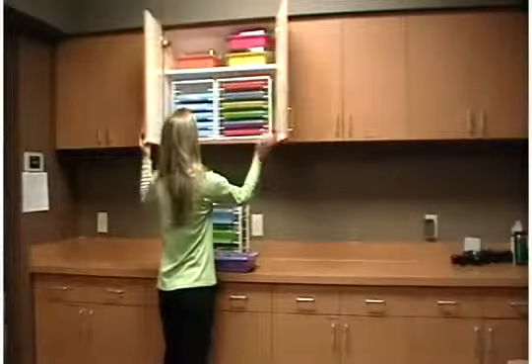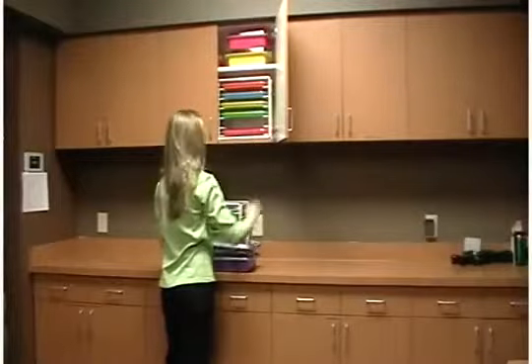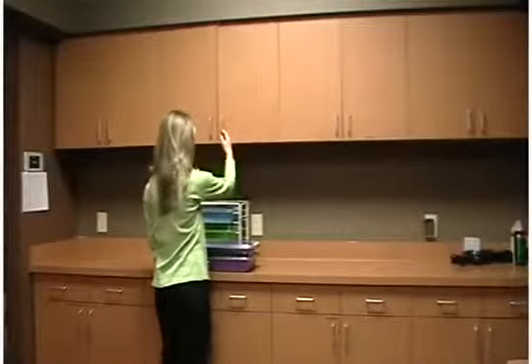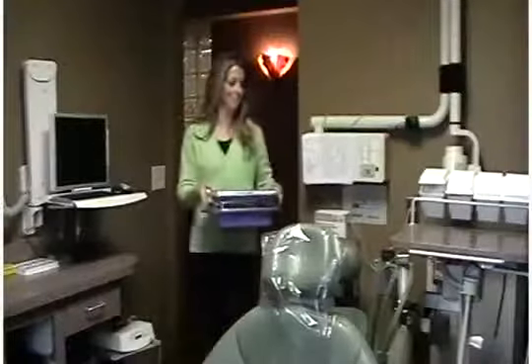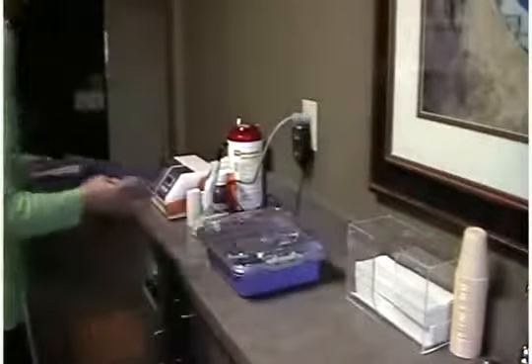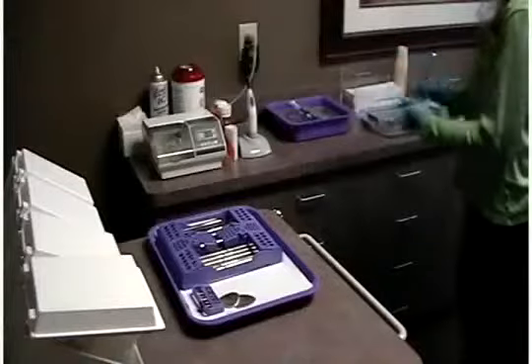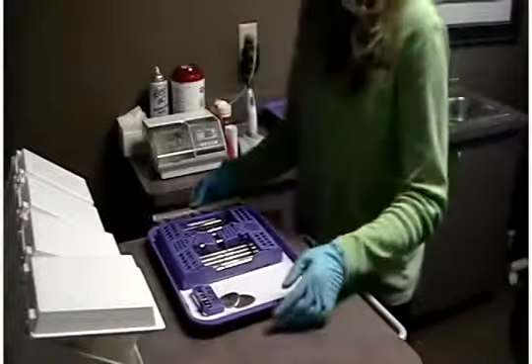When you are ready to set up an operatory for a procedure, simply pull the appropriate color-coded tray and tub. Your procedure tray will already contain all the instrumentation for that procedure, and your tub will have all the procedure-related materials needed. Zirc considers the tub and tray to be like the dentist's toolbox because it contains all your procedural items in an organized container that you can easily carry to the operatory without worrying about any items being left behind.